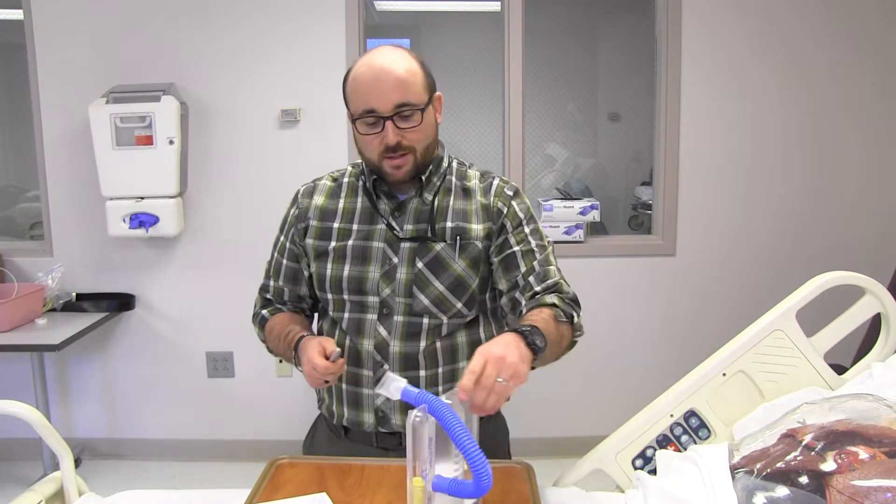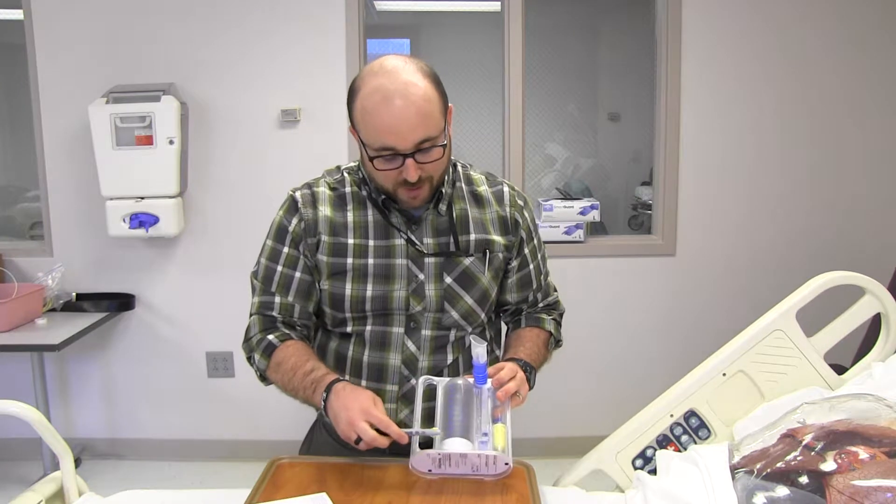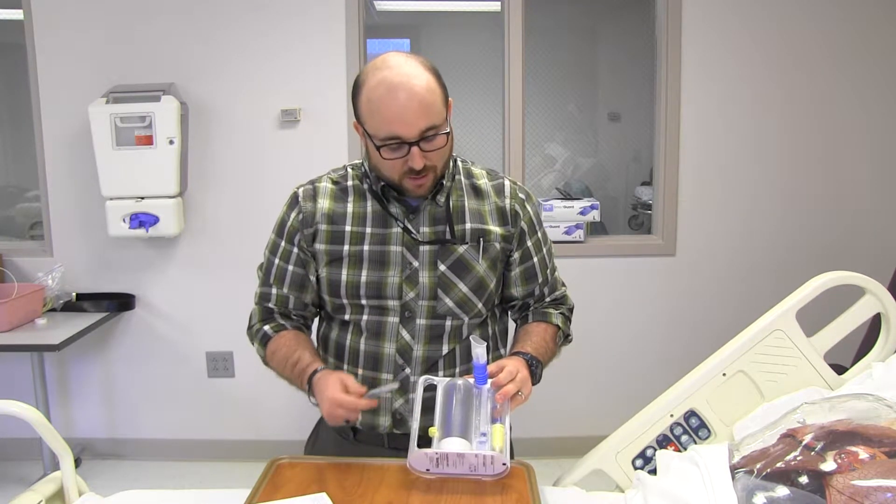Let's look at the target, because I ask a lot of patients what their target was set up at. And they'll say anywhere from a thousand to two thousand to five thousand, all the way at the top, something like that. But every person has a target and that's really key. We only need to know two things: are you male, are you female, and how tall you are. And I'll show you right now how to figure the target for everybody.